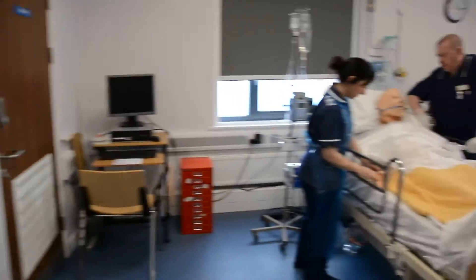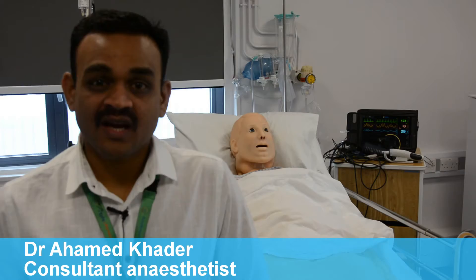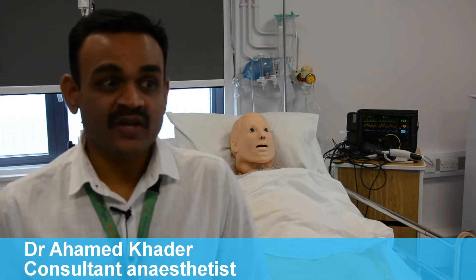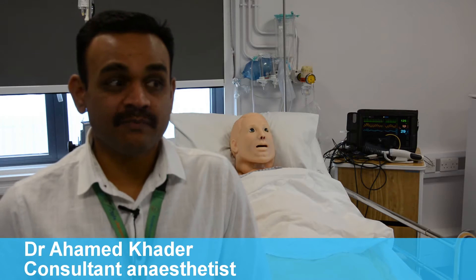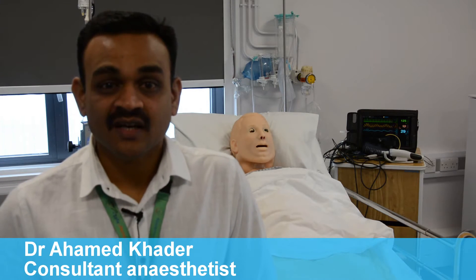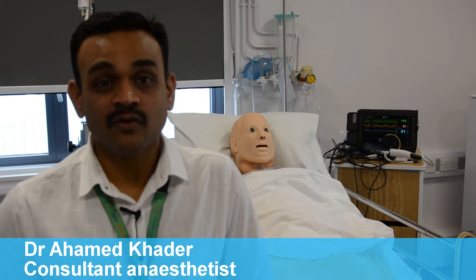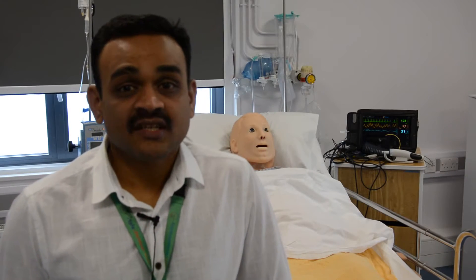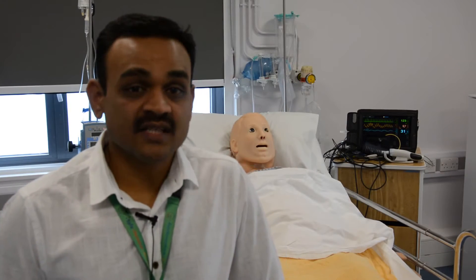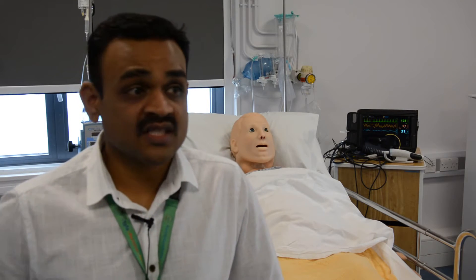We have a simulation suite of our own at Southend which I believe is one of the most advanced in the region and we should be really proud of having it. It's an incredible opportunity for us to enhance professional development and also to use it for staff recruitment and staff retention.